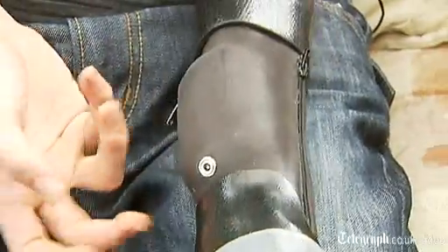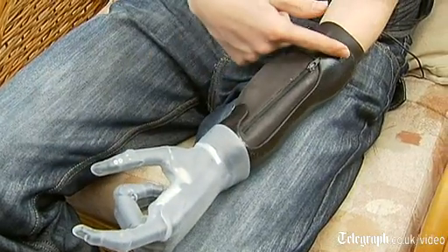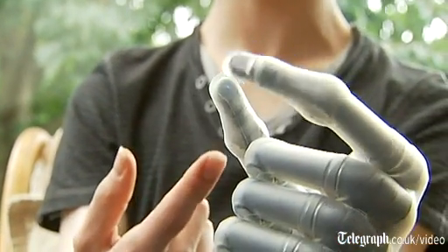Located in the base of the arm are two electrode sensors which pick up muscle movements in the lower part of my arm. When activated, these send signals to a small computer, which then sends more signals to five individual motors located in all four fingers and the thumb.